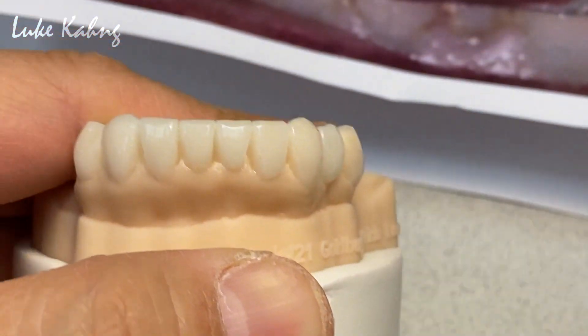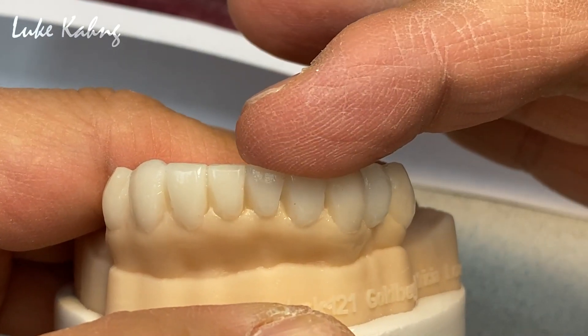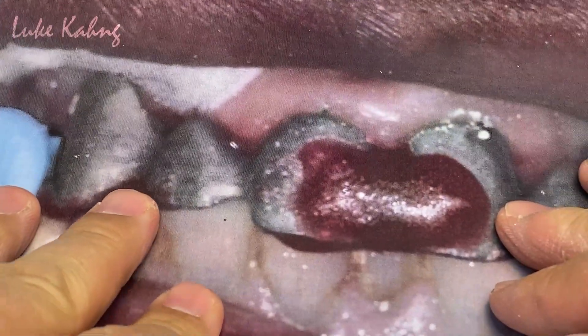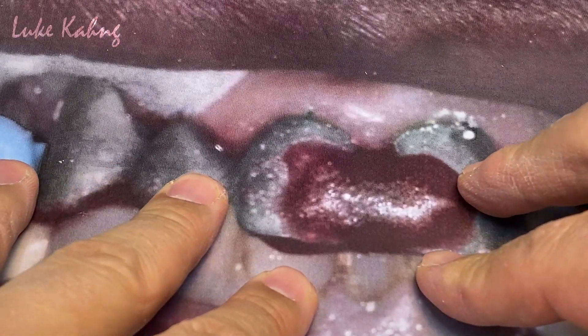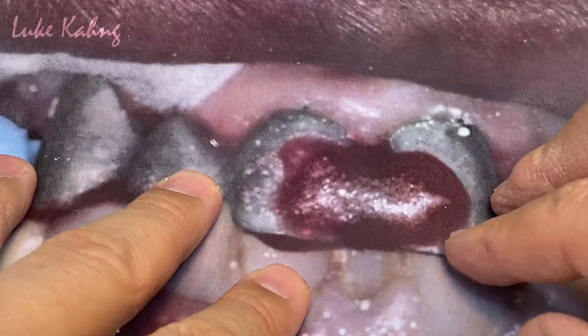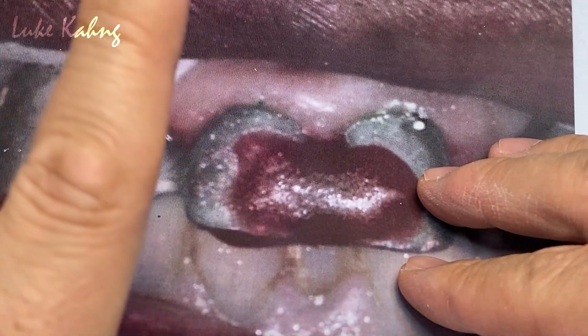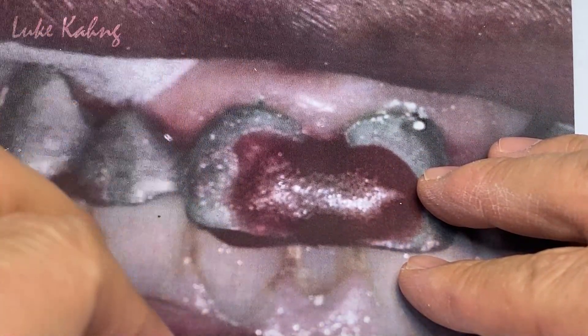In order to build the upper first — we build the upper, adjust the metal and frame the lingual, and then finally finish the porcelain build-up according to good occlusion contact. That's why we make a good case design here.